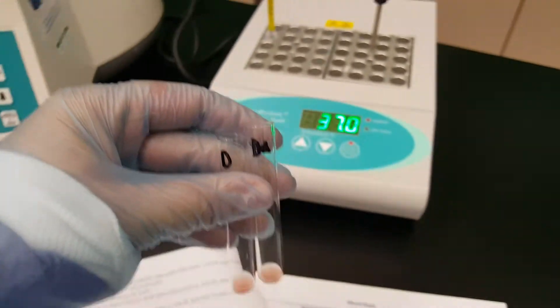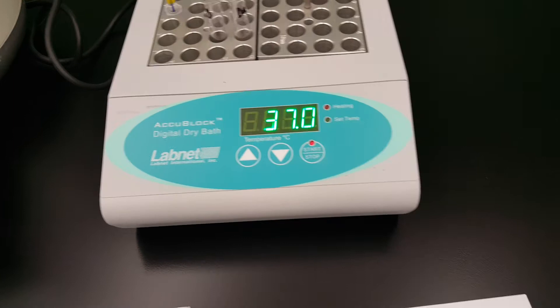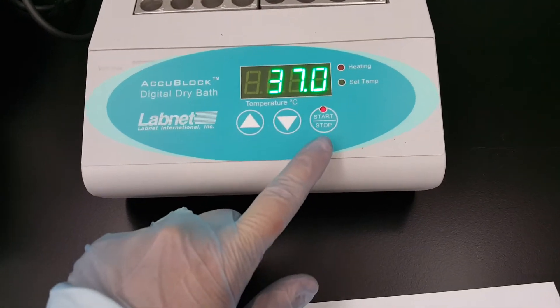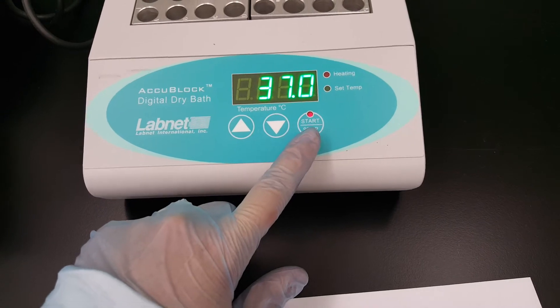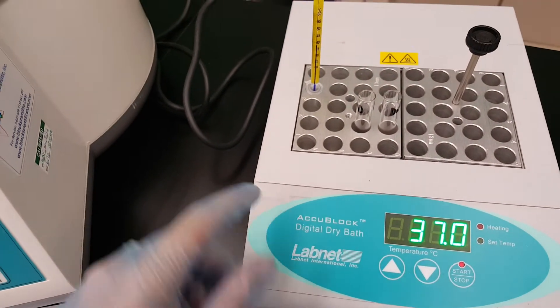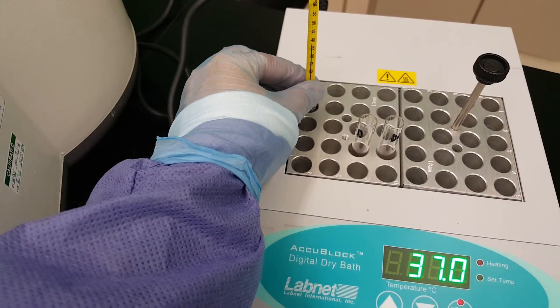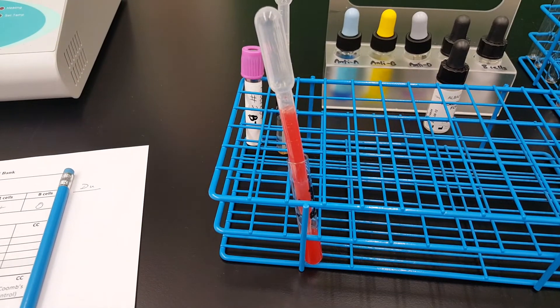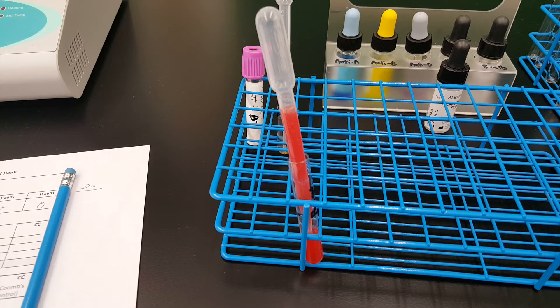I already have my heat block set up. Notice that it is on the start already, so it truly is at 37. And if you look at this, it is warm in here, but the manual thermometer does say 37. So we're going to incubate those for 30 minutes and I'll get back to you.